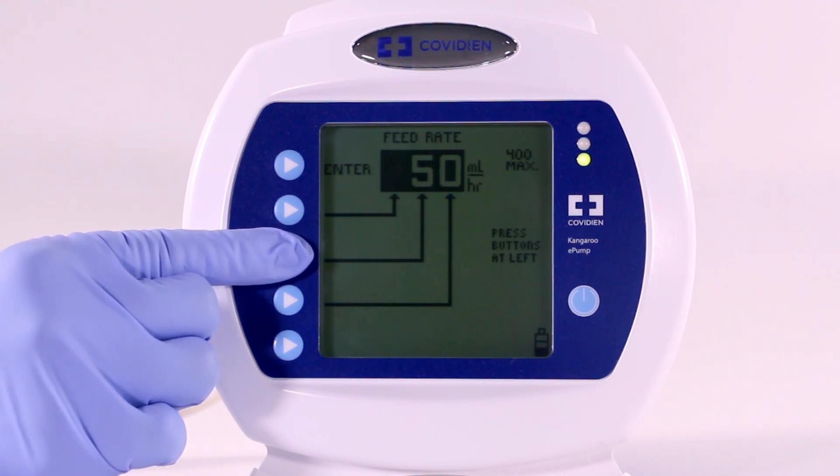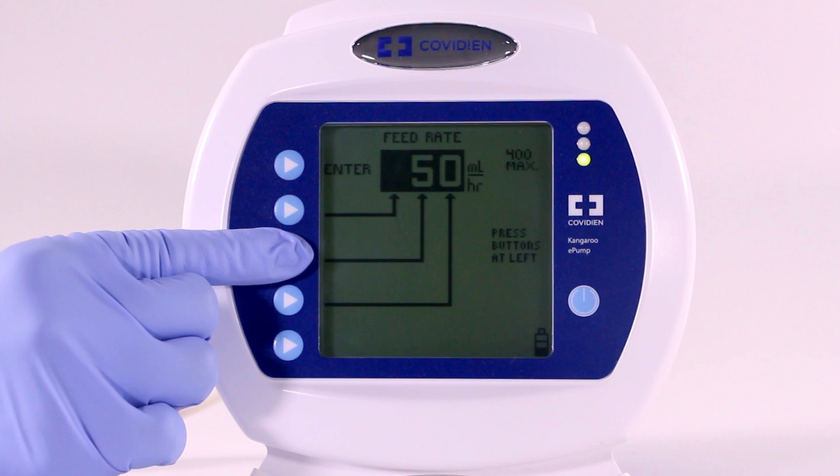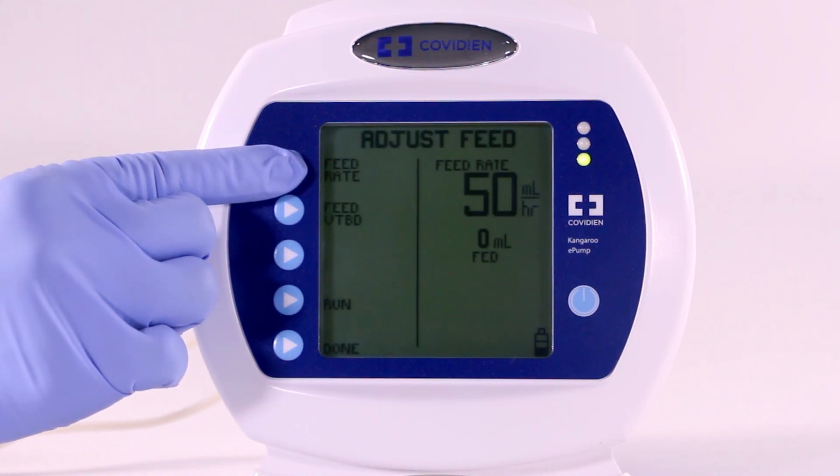Separate arrows control the 100s, 10s, and 1s. Once you reach the desired feed rate, press Enter to exit the menu.